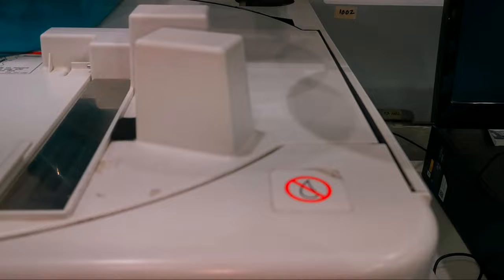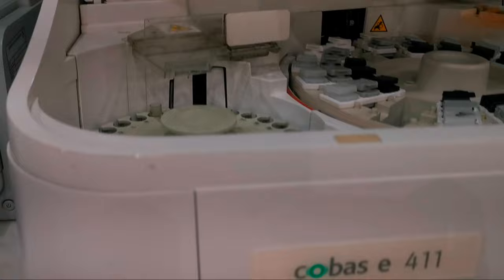Cobas C311, a fully automated clinical chemistry analyzer. Cobas E411 for immunoassay analysis.